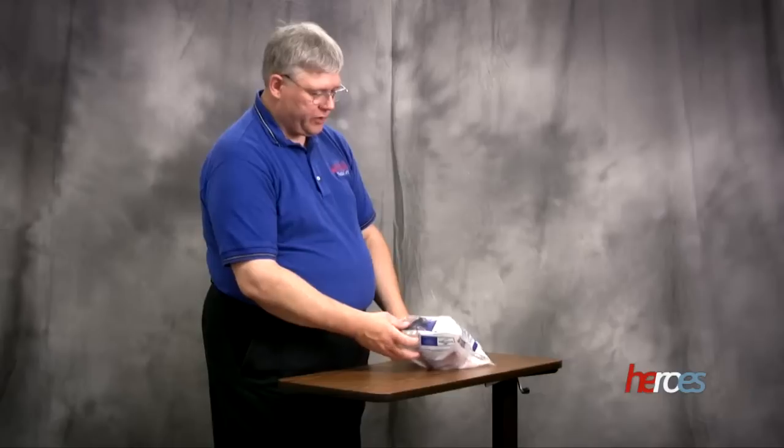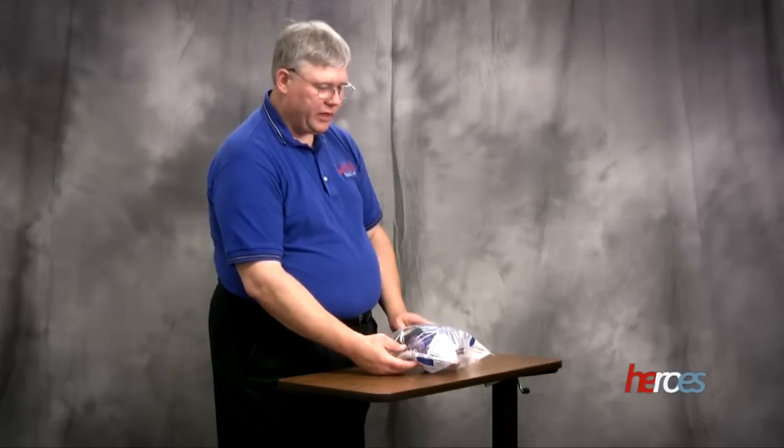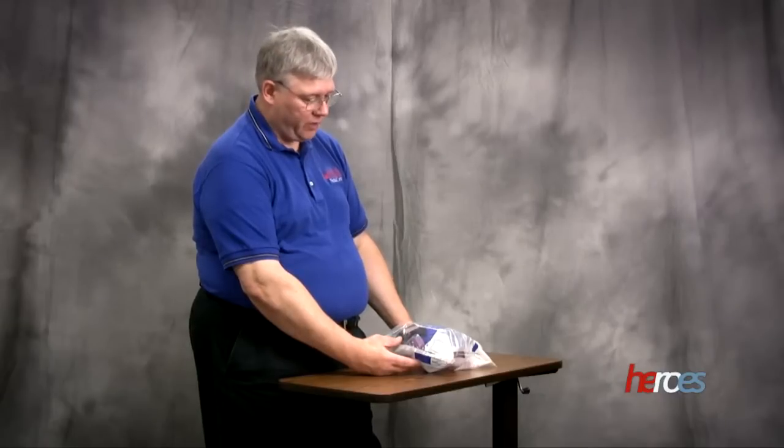And then remember, the filters for these respirators, these P100, in the healthcare environment we're using them in, they will last a long time. A good recommendation is at least every three months you want to change the filters. If you have difficulty breathing through them, that means they may be clogged, but that's usually in dirty and dusty environments, those that you wouldn't see in a healthcare environment.